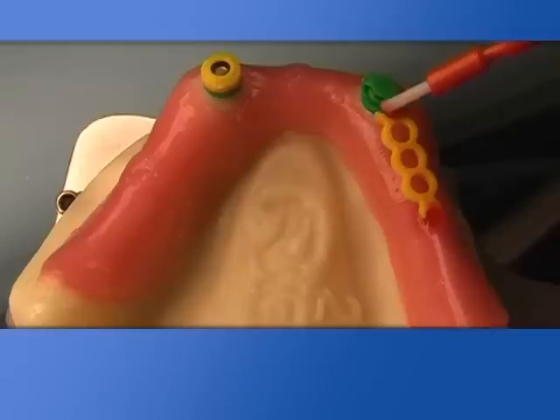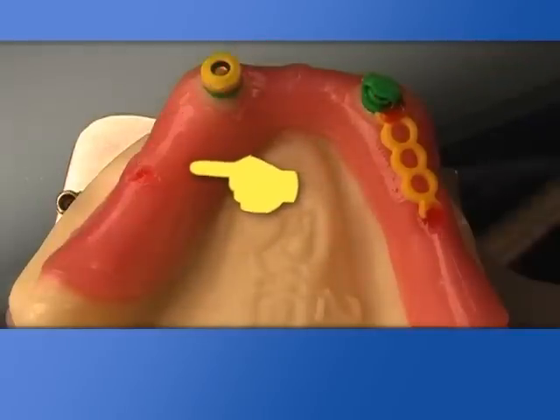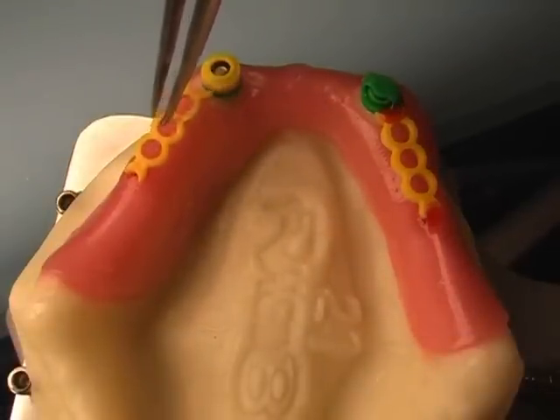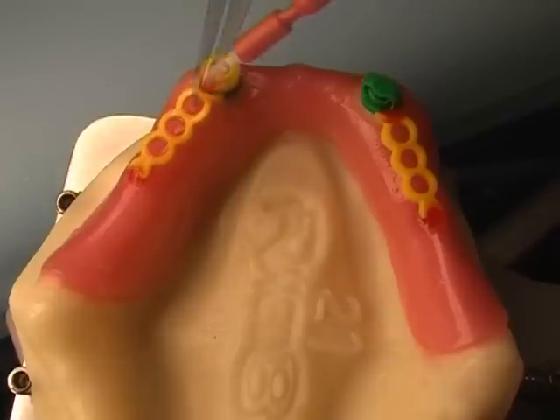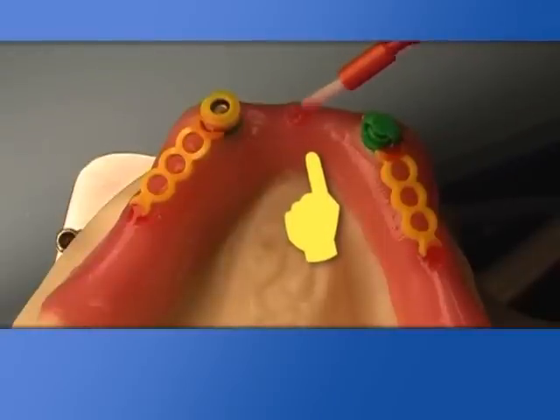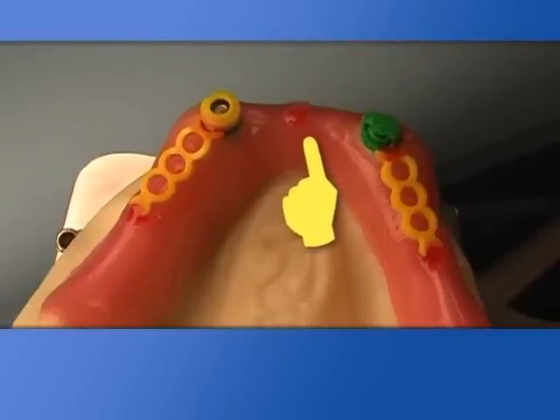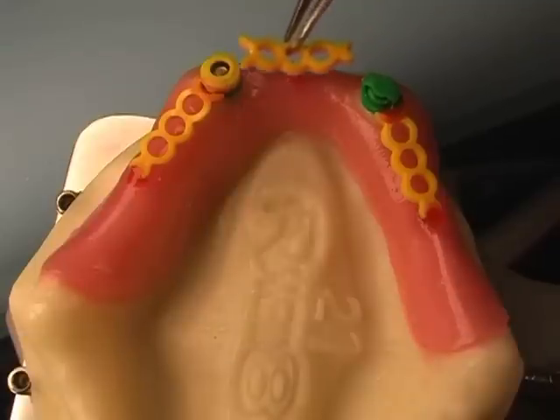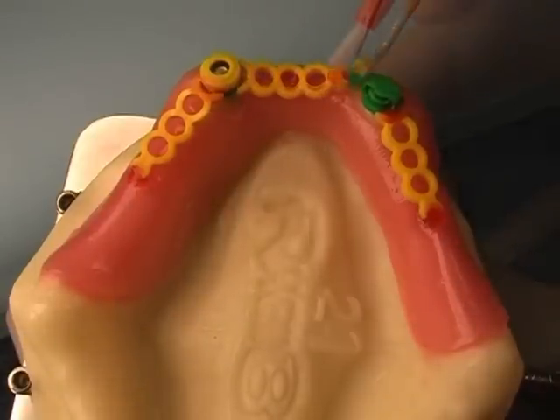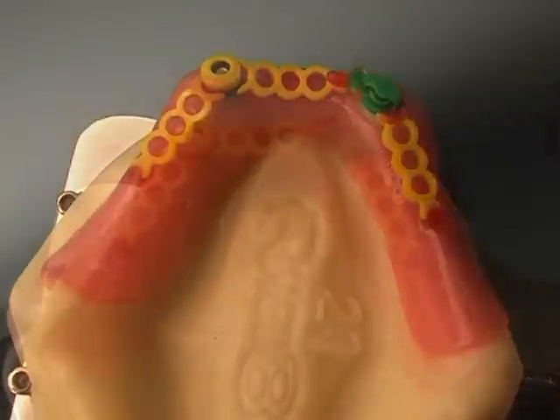Link by pattern resin small sections of castable components in order to avoid retraction. Let the resin cure and connect the whole reinforcement surface. Instead of using too much resin, and to ensure as much passive connection as possible, use extra leftovers of castable parts.